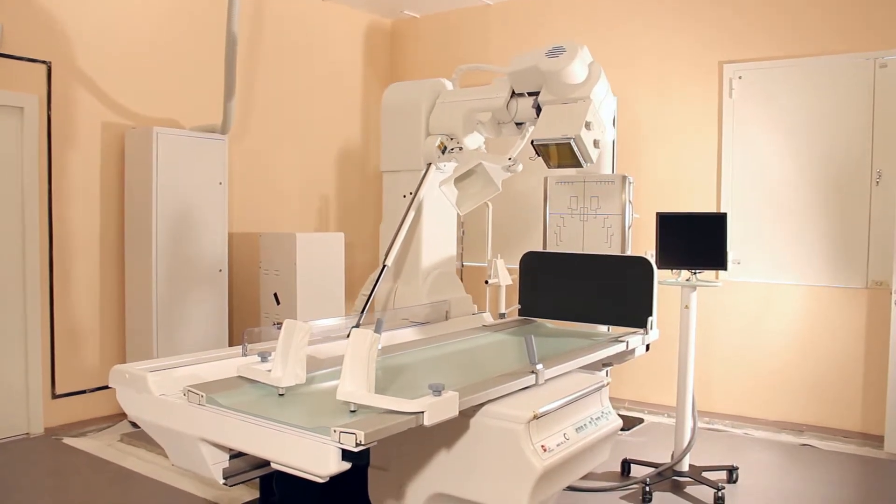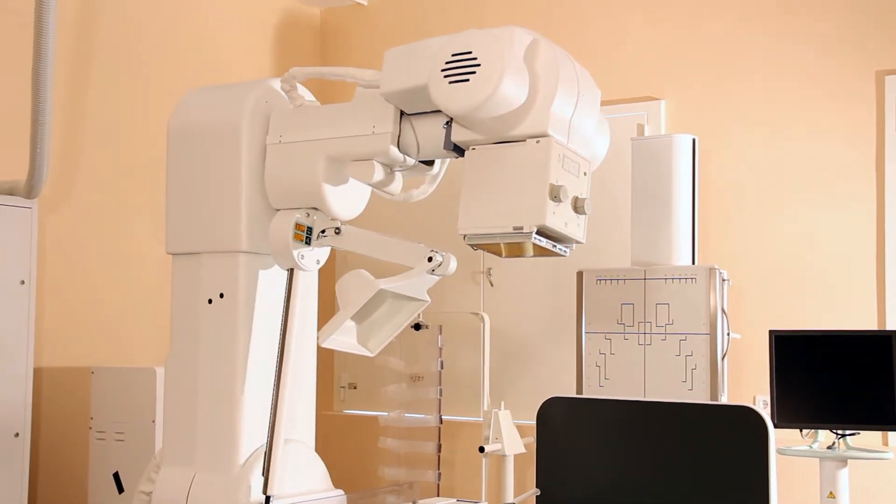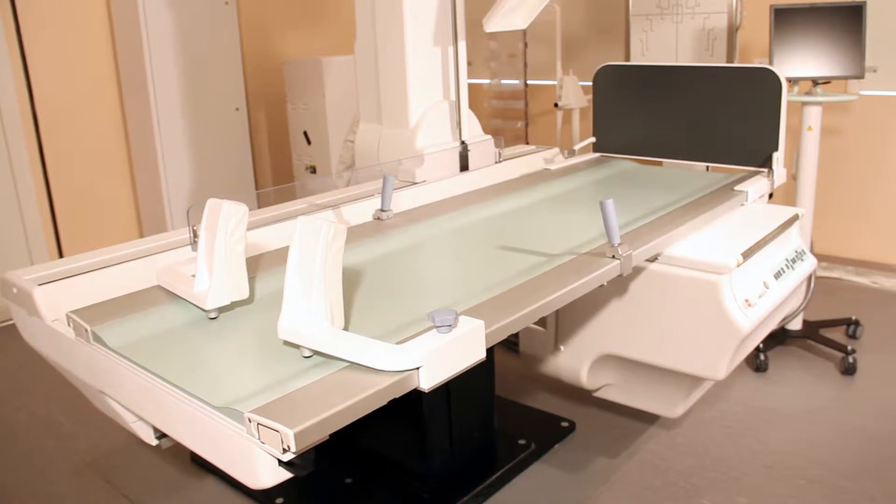It is possible to carry out linear tomography at different tilt angles of the table. Column movement has two speeds for every angle.